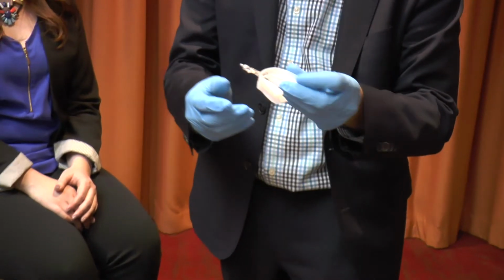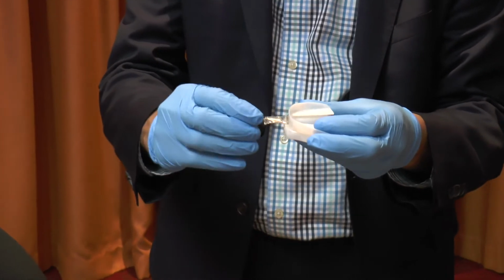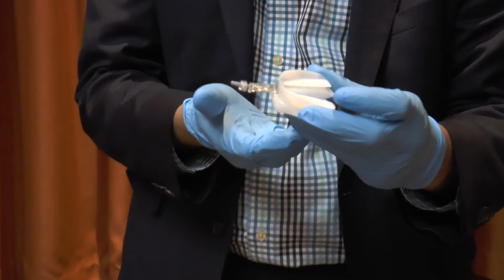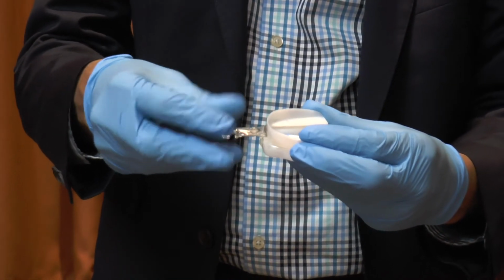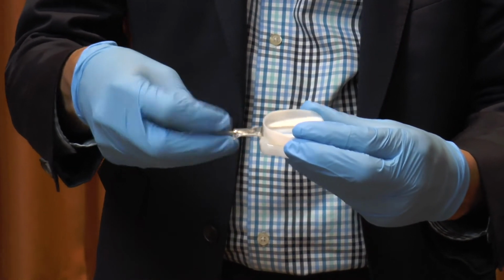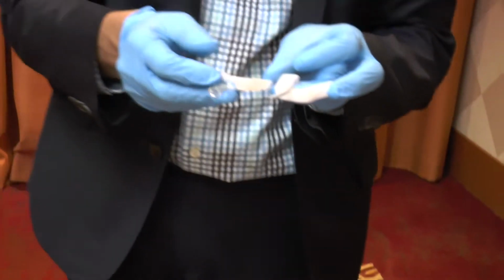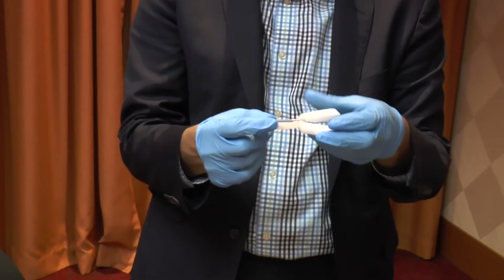So the first part to this device is you have an upper and lower tray that is connected together with an adjusting rod. And on the rod you have basically a screw that allows you to drive the lower jaw forward. So the first thing we're going to do is dismantle the device and separate it into two pieces. All right, and we're going to slide the top portion away from the bottom. What differentiates one from the other, the top portion has this beak and the lower portion actually has the shaft.